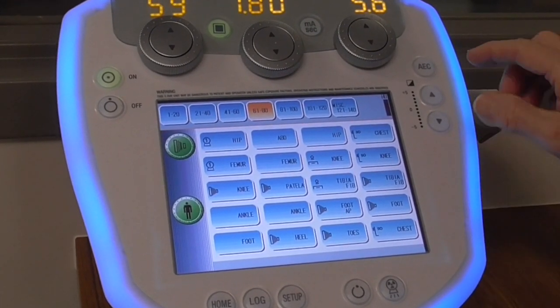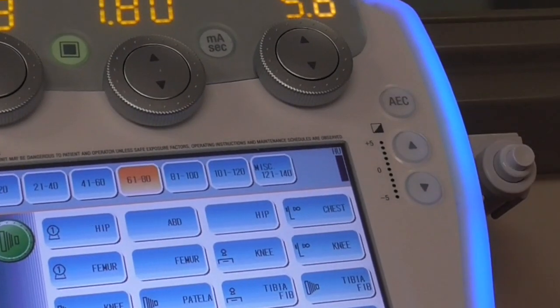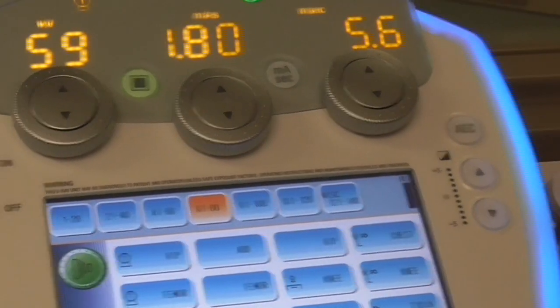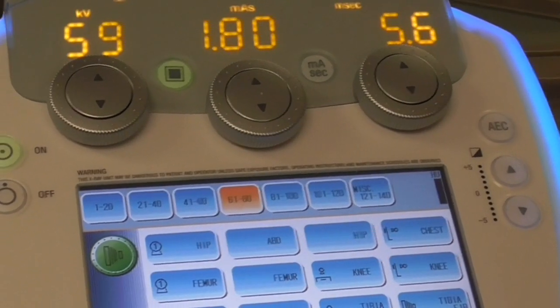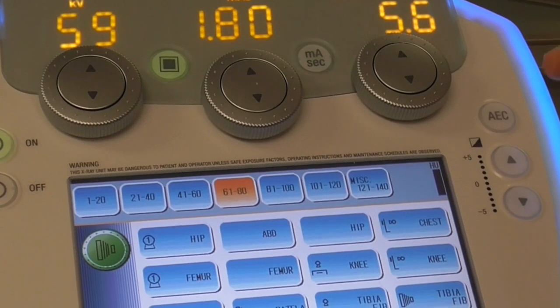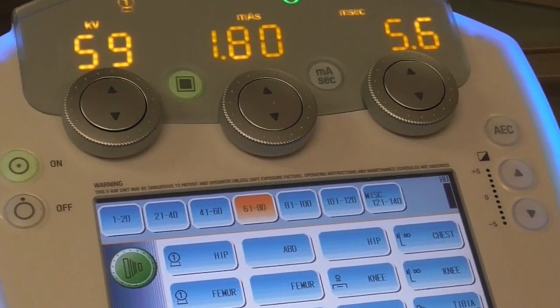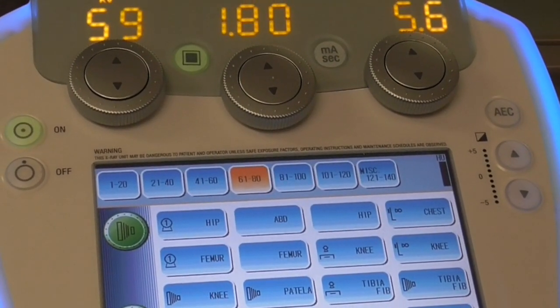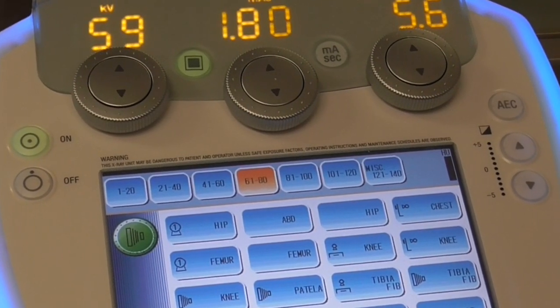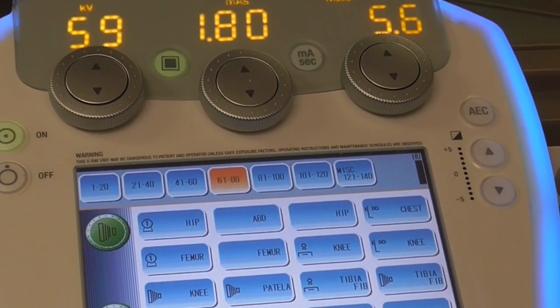The control panel also has an icon referred to as AEC, which stands for Automatic Exposure Control. A good analogy is putting a car's transmission in auto. When using AEC, the milliamperage and time are determined for you by equipment in the room, adjusted to get the correct density for that body part. That's getting a little advanced and we'll cover it in more detail in class.